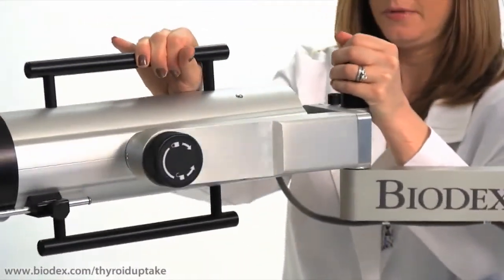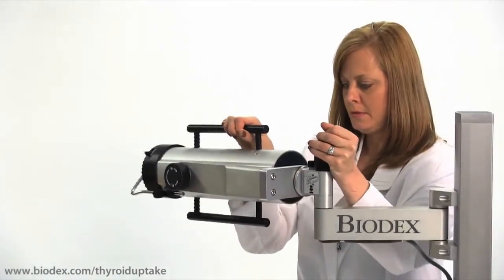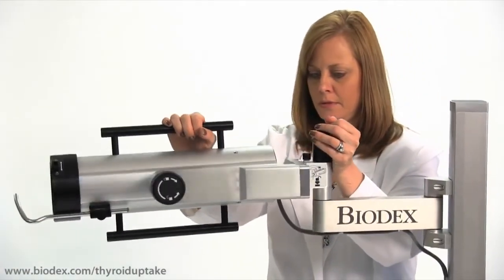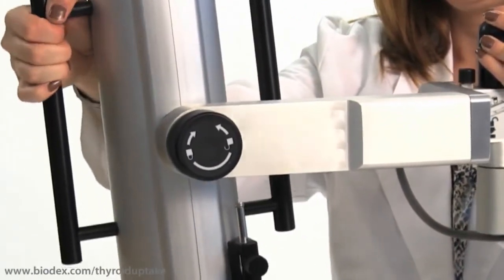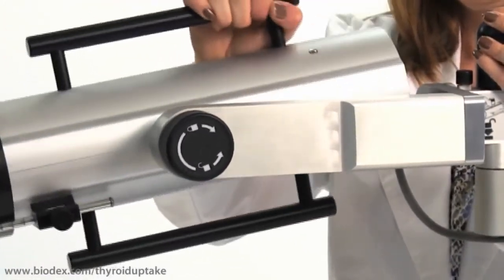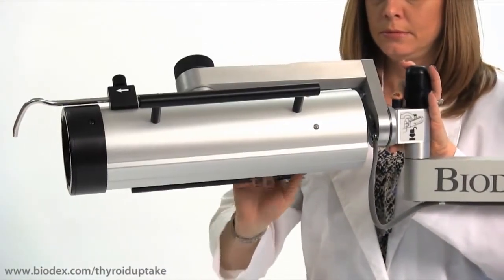The probe swings more than 180 degrees on the horizontal plane and extends outward up to approximately 31 inches horizontally from the support column. This design makes positioning for uptake studies simple and comfortable for both patient and technologists.